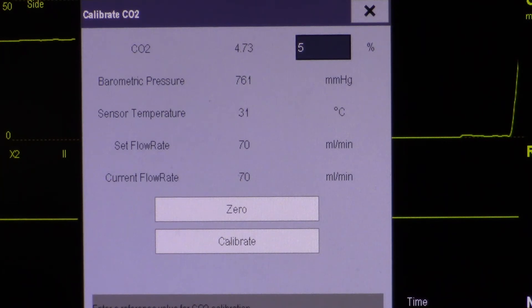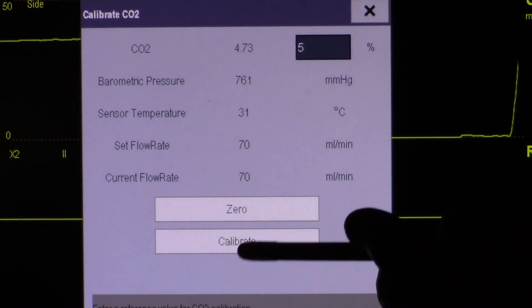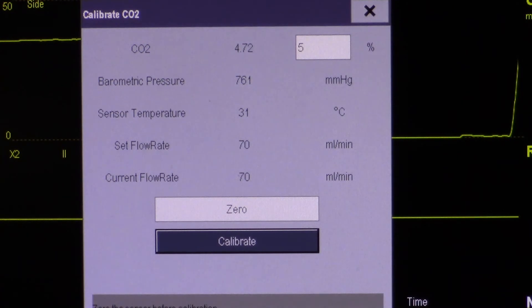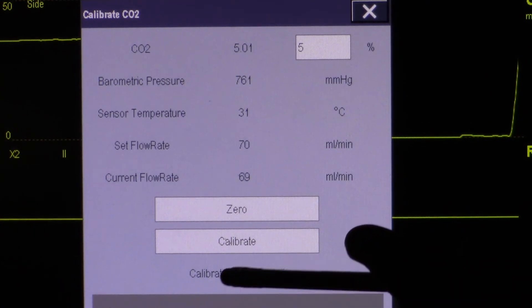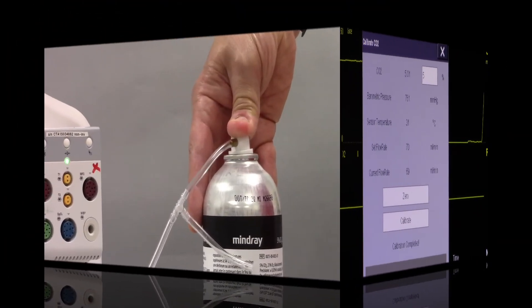Touch calibrate while continuing to apply the gas. When calibration completed is displayed, release your calibration gas.